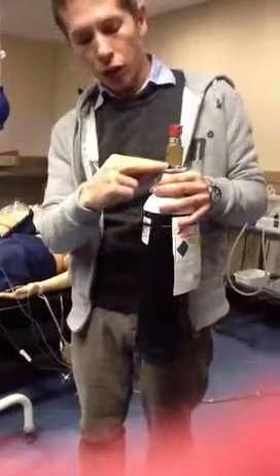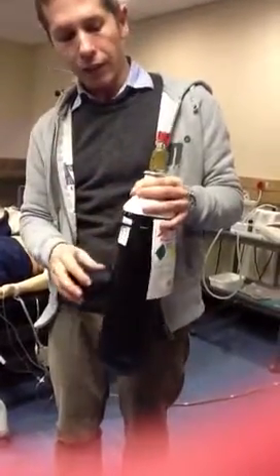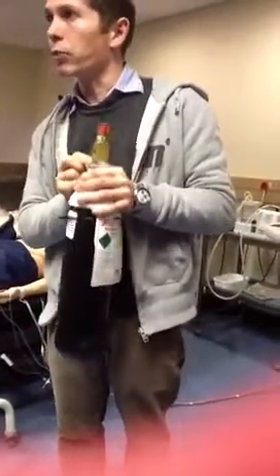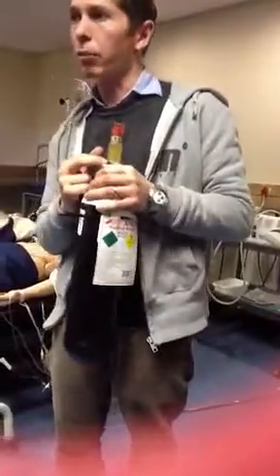Oxygen is in the 2 middle ones. Carbon dioxide is in the 2 far ones, so it differs. This means that only oxygen can be connected to an oxygen connection because of these pins. This is the pin index.